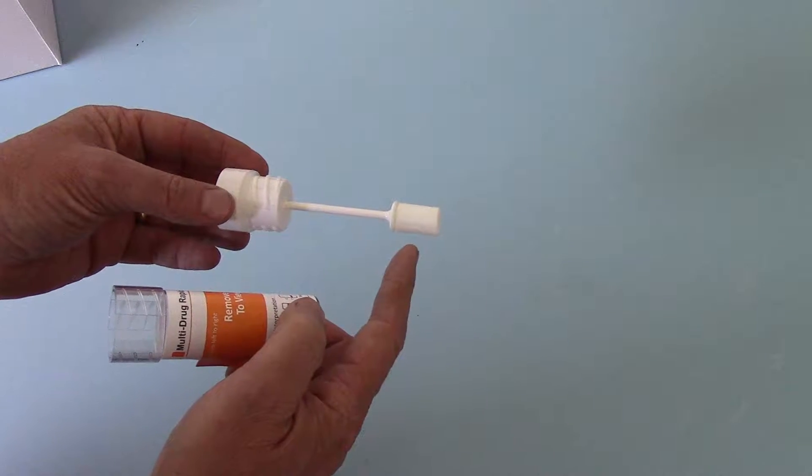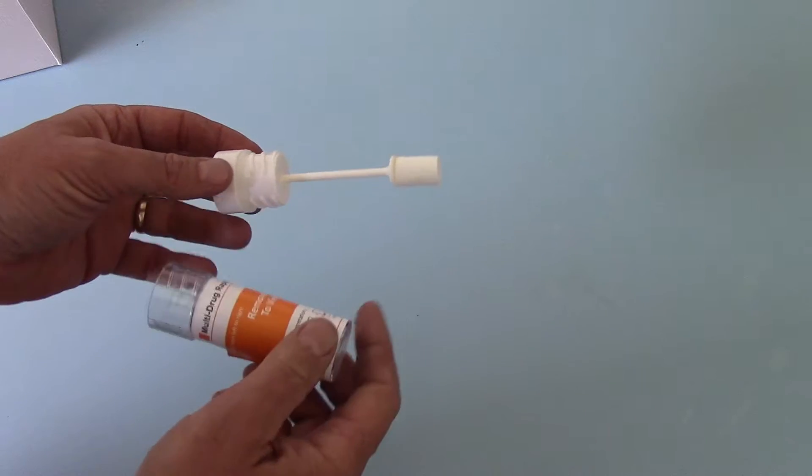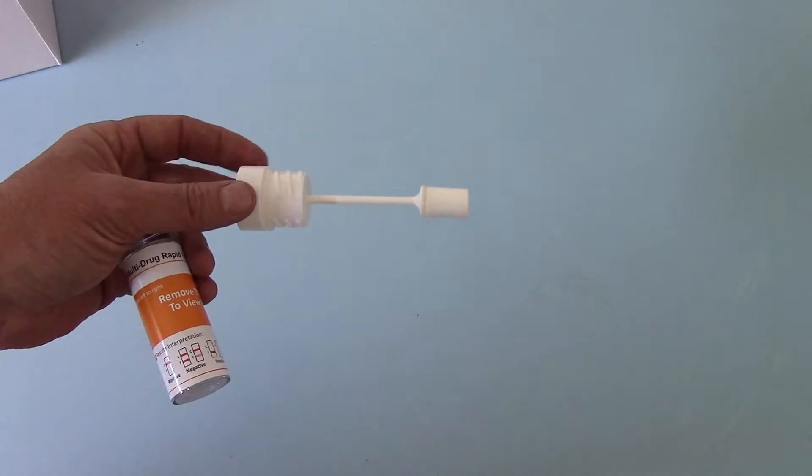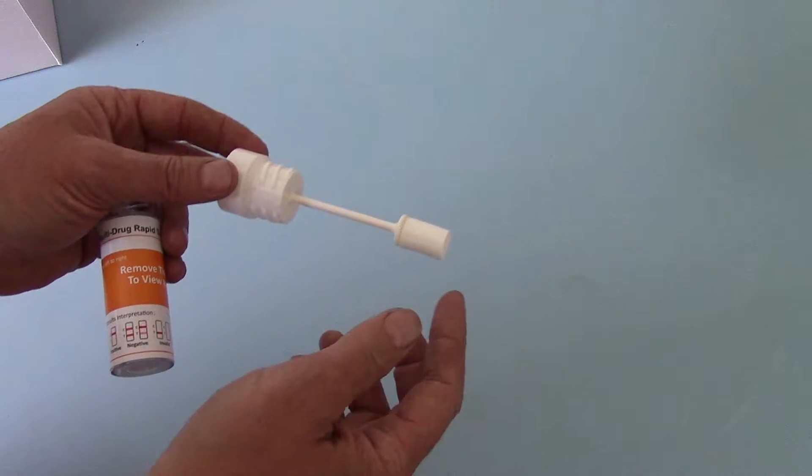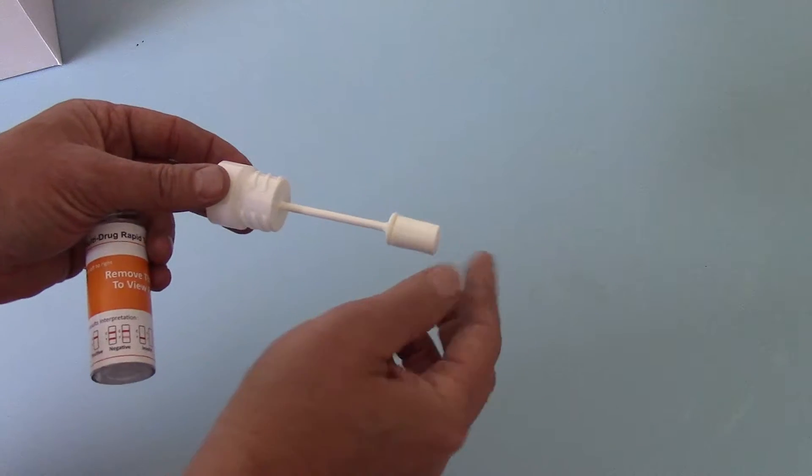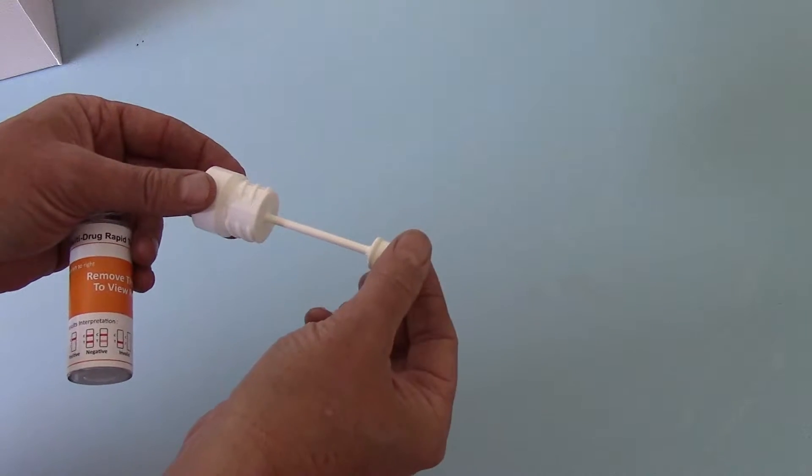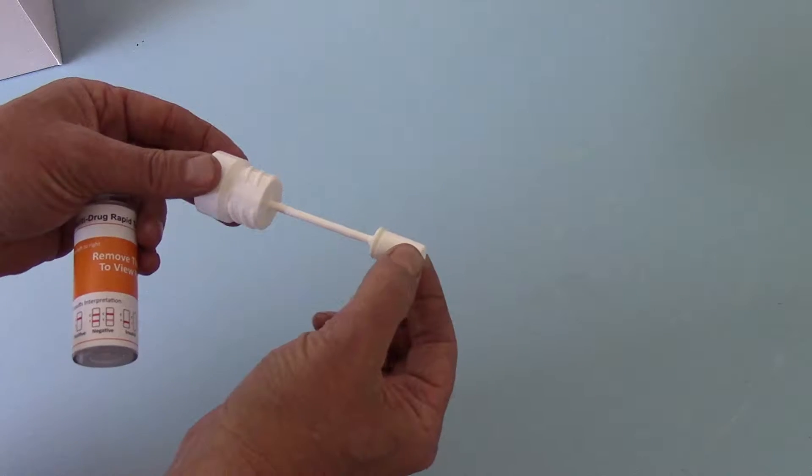This is the element that goes into the oral cavity. This is a sponge. Just to point out, we do get this in terms of our customer support inquiries. This sponge, when it comes to you dry, is very rigid and firm. There is no giving that at all.